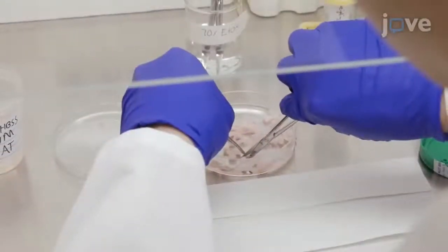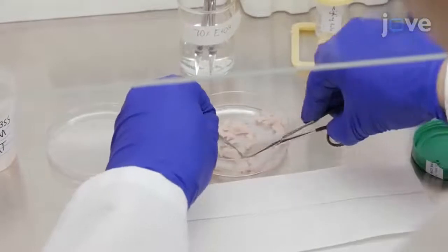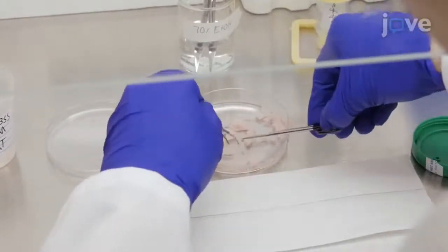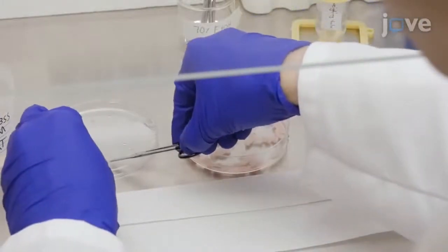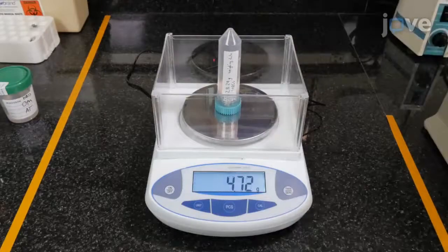Once the sample arrives at the lab after the tissue extraction, carefully clean and remove fibrotic and cauterized sections of the tissue by using 70% ethanol swabbed scissors and tweezers. Weigh the adipose tissue and partition it into 5-gram aliquots for the collagenase digestion.